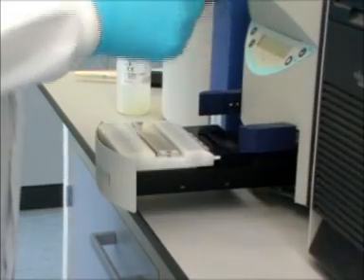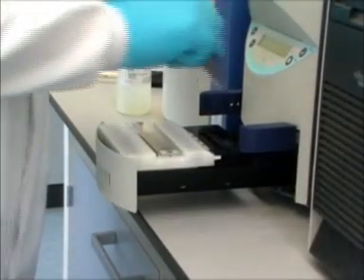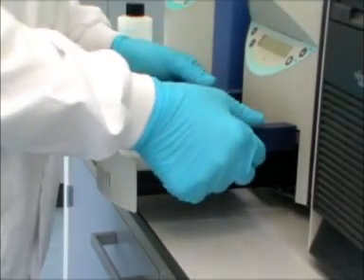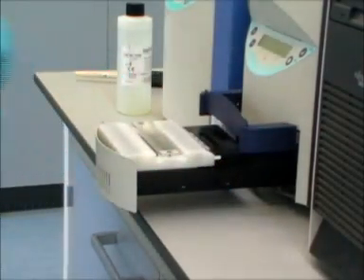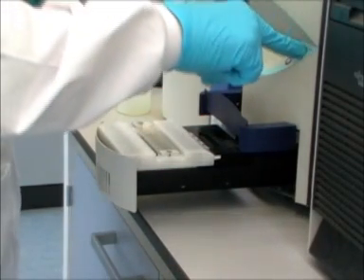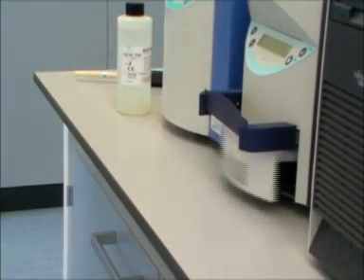The comb is put in position. It only fits one way round. For the acid haemoglobin gel, the comb is located in the front pair of the two sets of slots. With the alkaline haemoglobin gel, the comb would be located in the rear pair of slots.